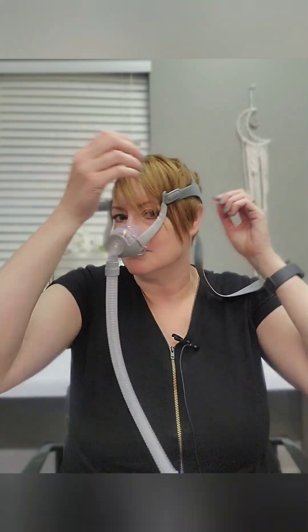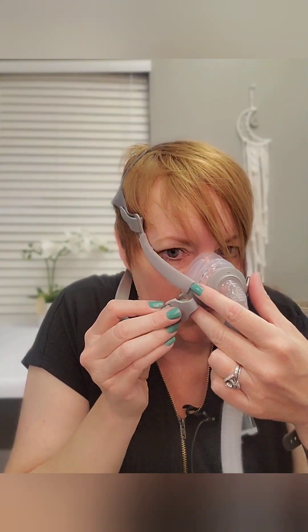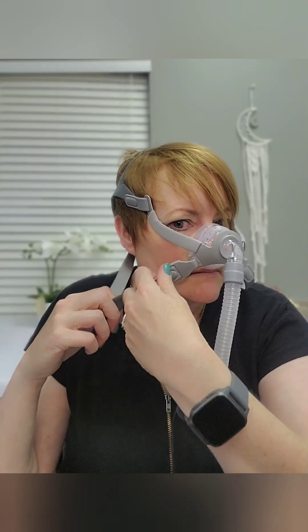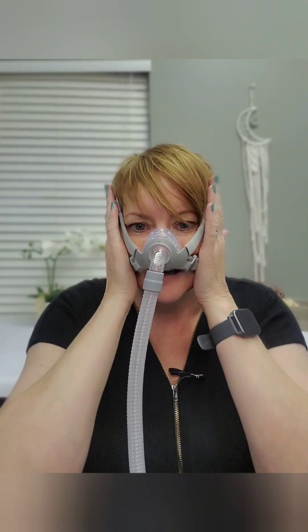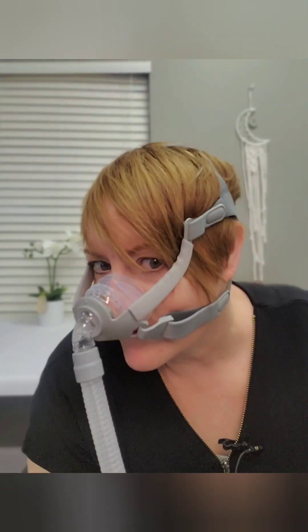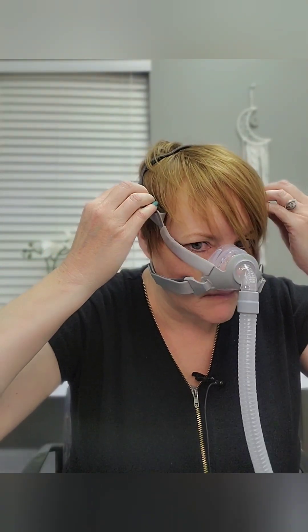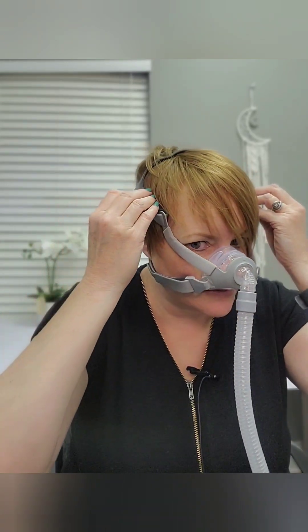There are four velcro points on the headgear. It didn't immediately fall off, which I like. Tightening the straps down — okay, let's see what we think. That's awful close to my eye, but there's no way about it, that's just where it sits on me. Most straps run right through there, but this is barely touching, so I would not get a mark — it would have to come way back before making contact.